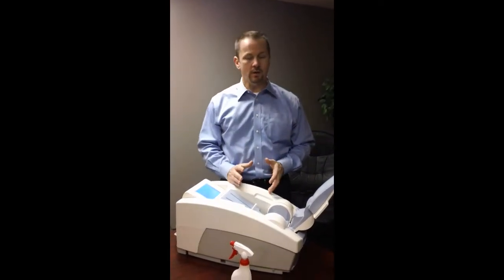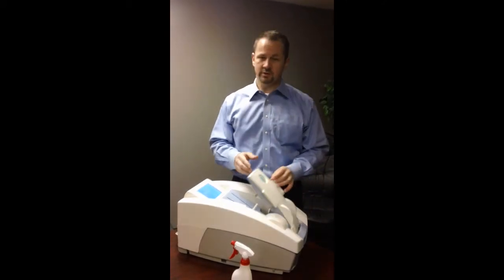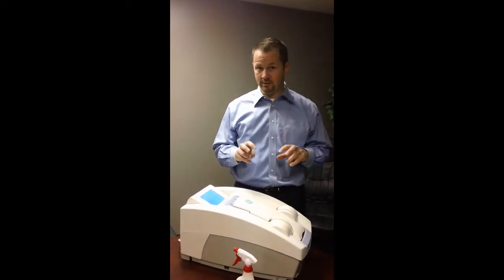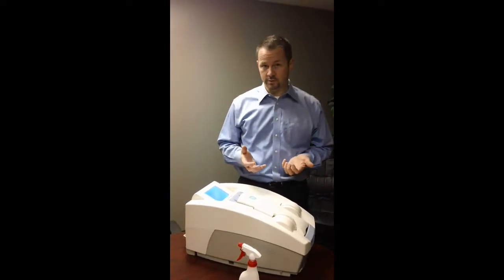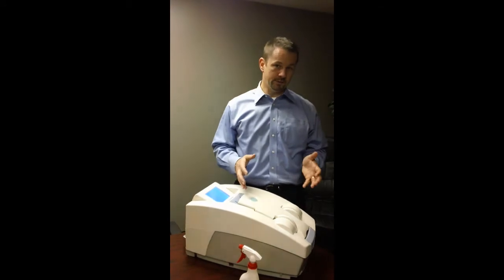It's a wonderful small compact unit that gives very accurate results. I wish that we had a demo unit that we could provide that I could bring to actually show you how this works. We just don't, unfortunately. But what I can do is walk you through a system here.